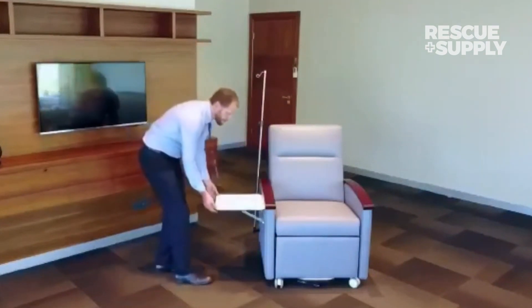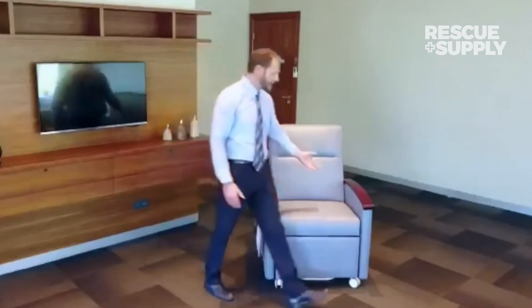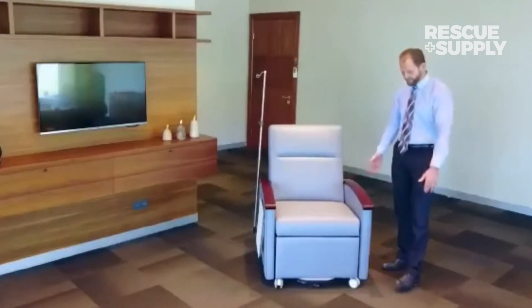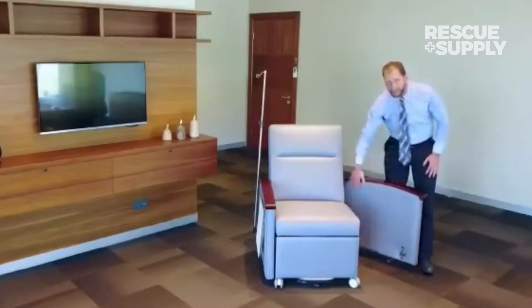You also have the food tray — simply lift up and release. Each side of course has the levers for opening up for TV position, as well as a lever for opening for cleaning.